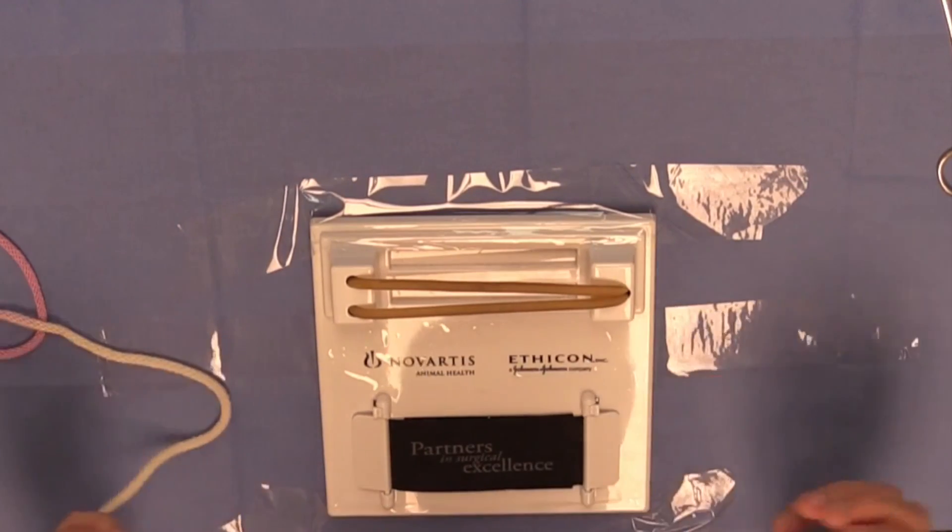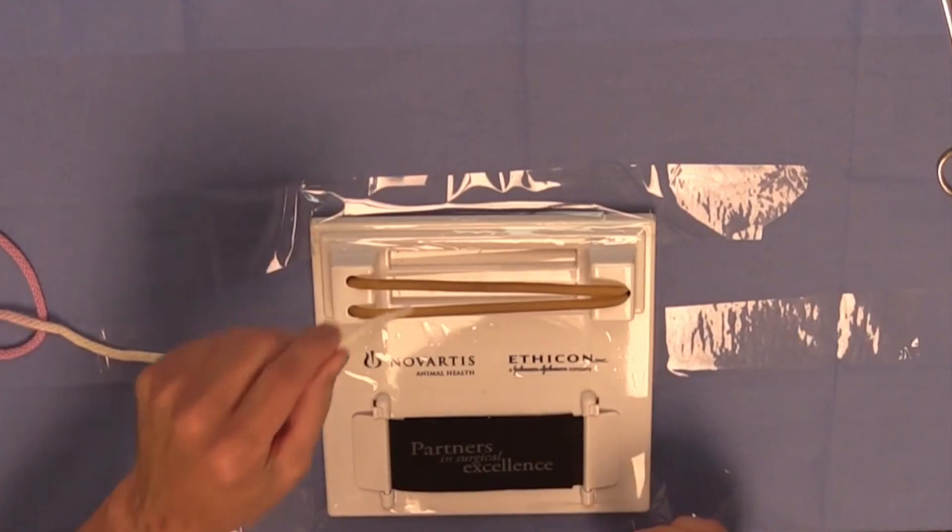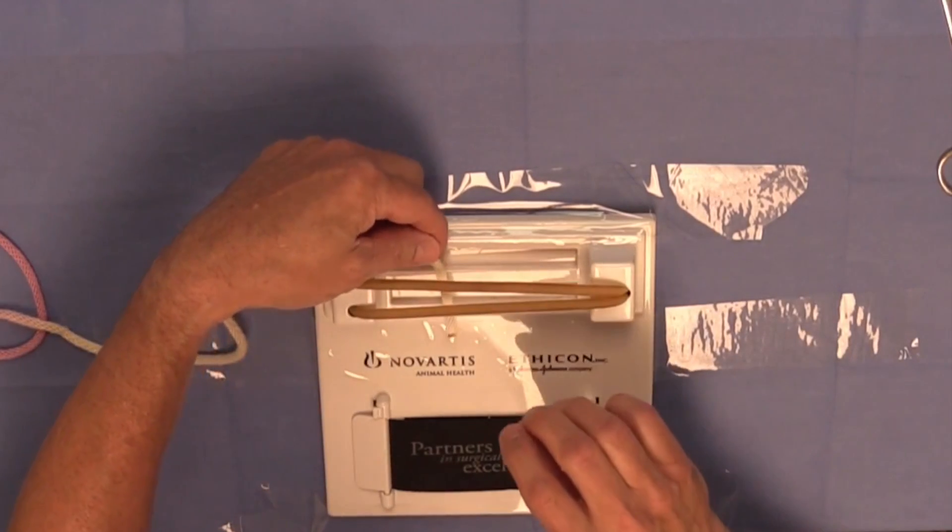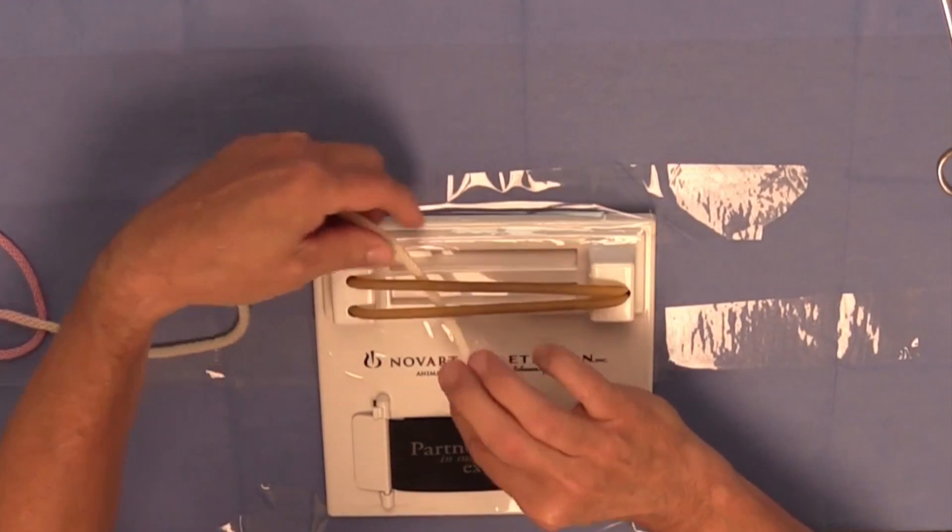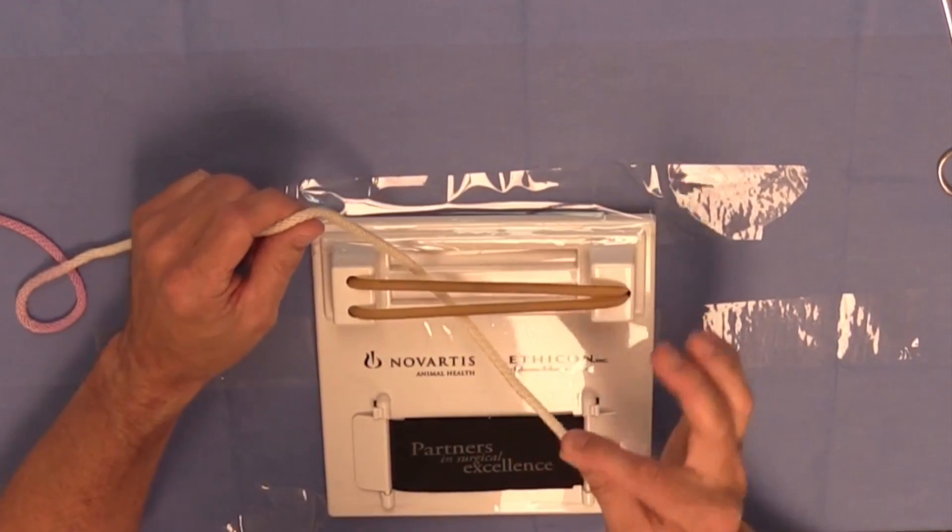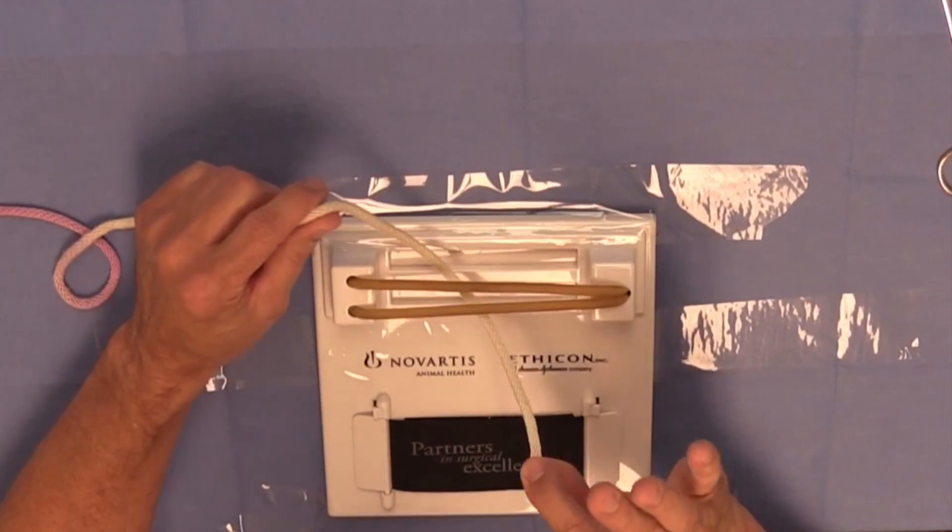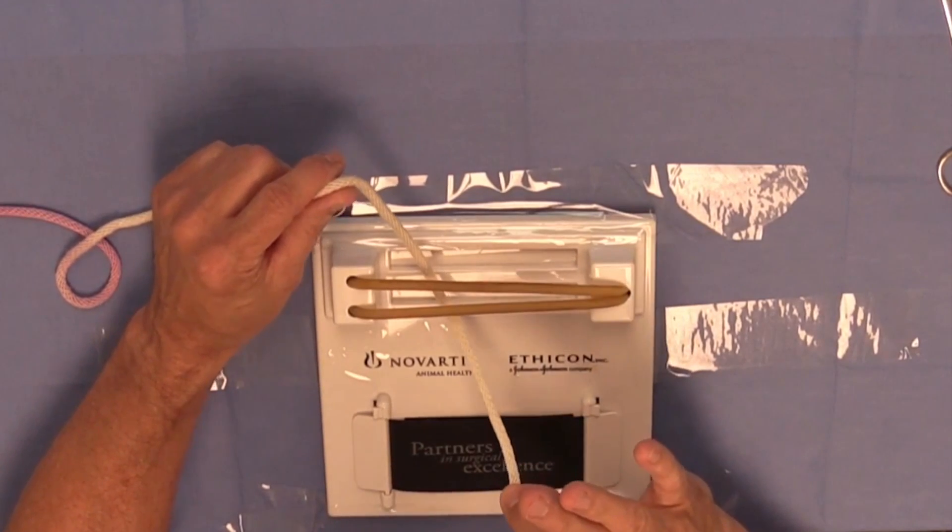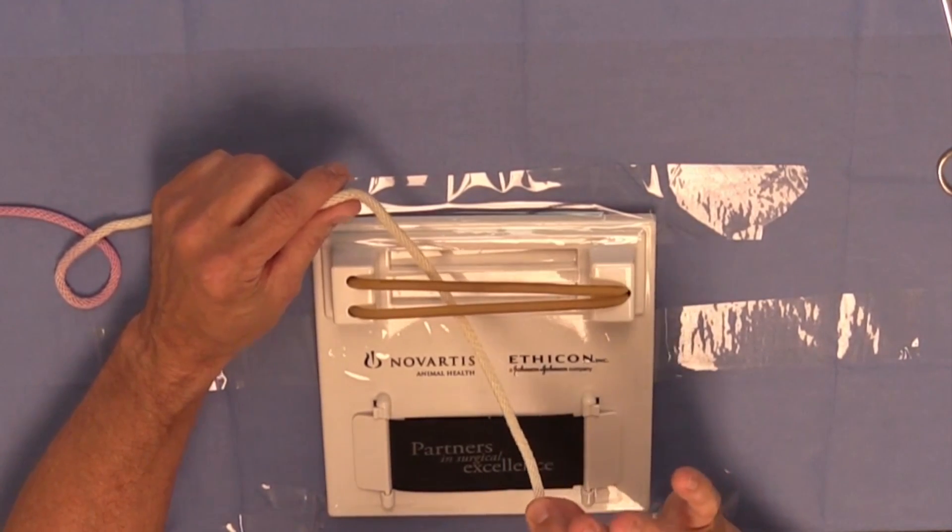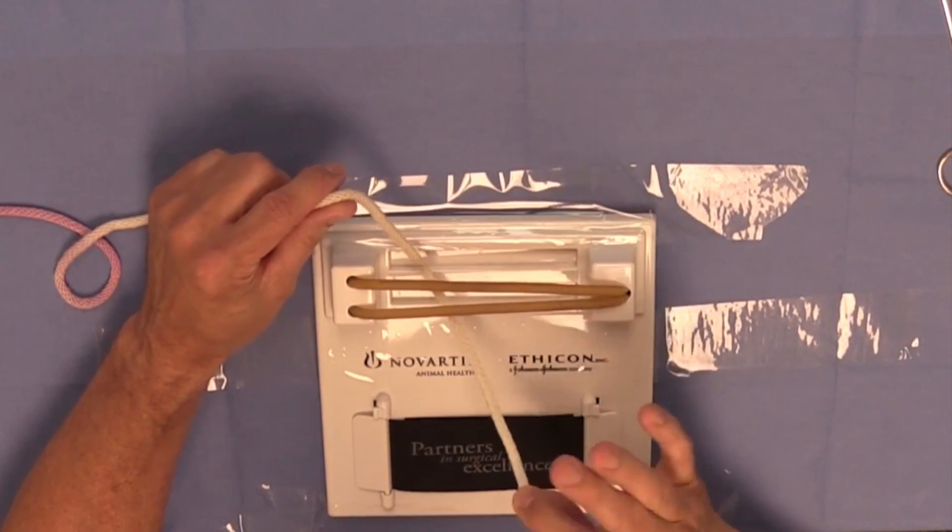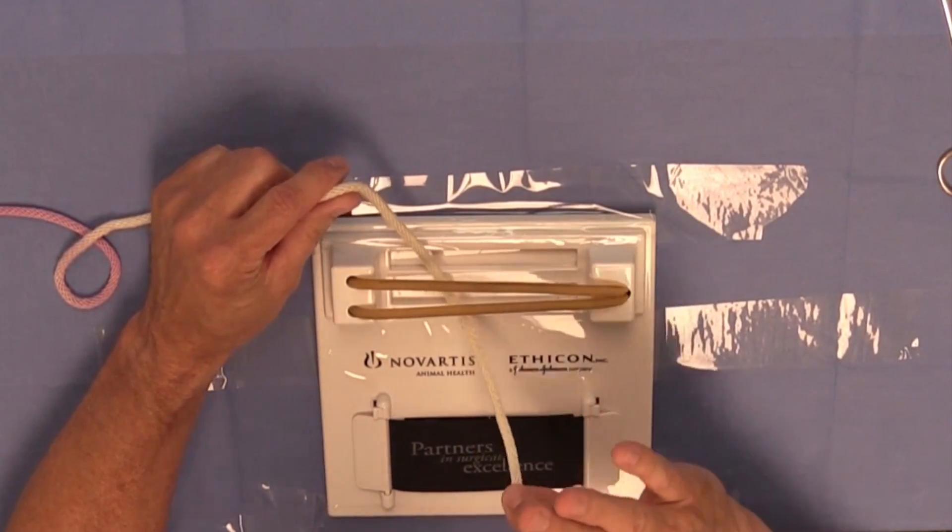So I'm going to demonstrate one way, and then I'll demonstrate the other. First, I'm going to feed the suture material around the tubing in this way, and I'm going to grab the suture with my index finger and thumb in my right hand. So this is a surgeon's knot constructed using a one-hand technique, creating it with my right hand.